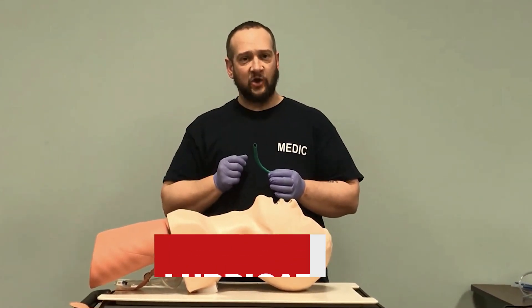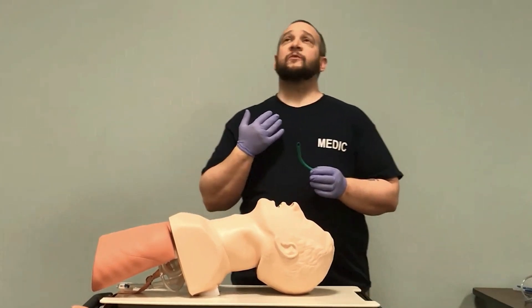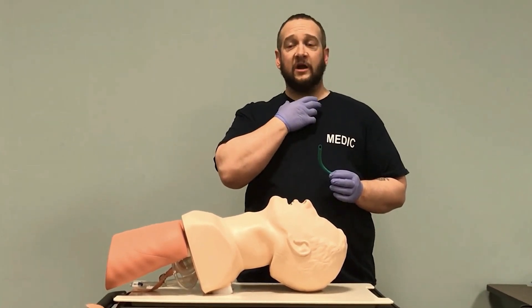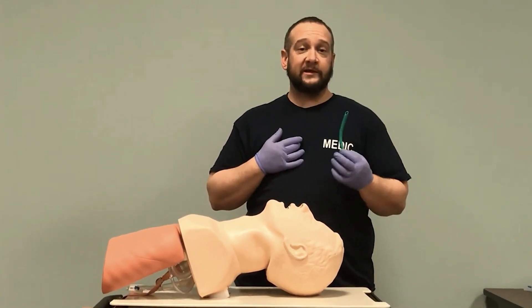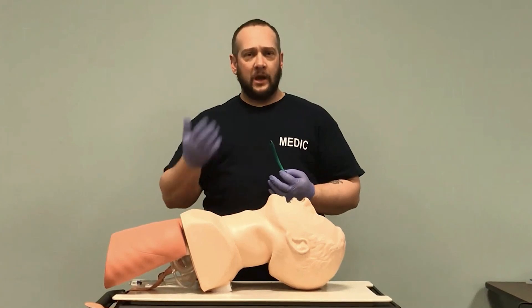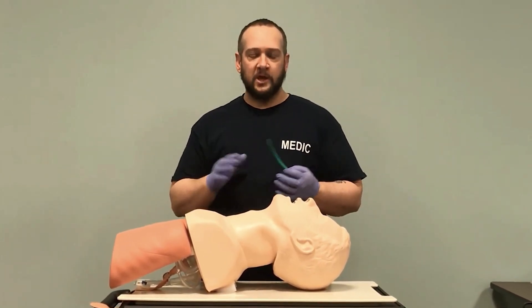If we have plastic on that soft tissue without lubrication, the nose is very vascular. If we start to damage those capillaries and vessels, we can have bleeding. If the patient is supine, all that blood goes to the back of the throat — into the pharynx — and can be swallowed or aspirated down the trachea. Blood is also toxic to the stomach, which will try to expel it, causing vomiting.